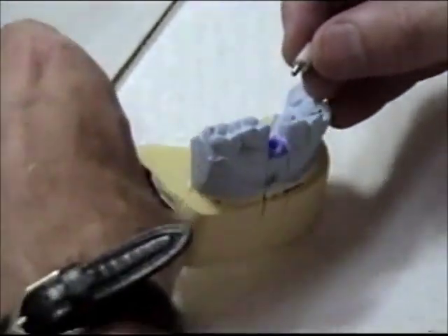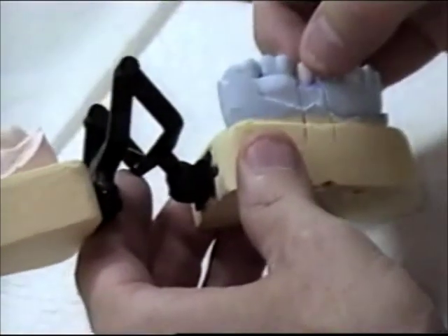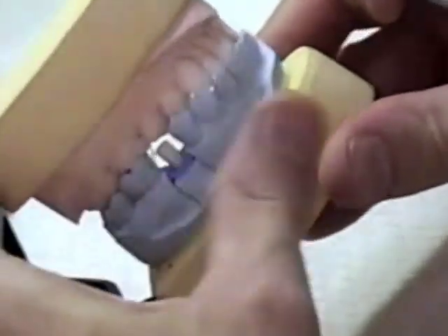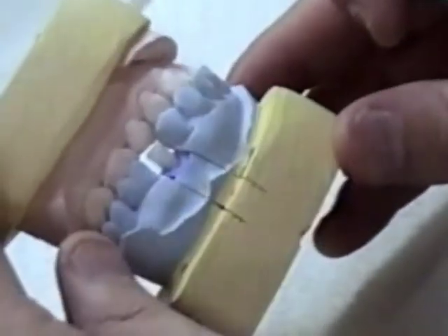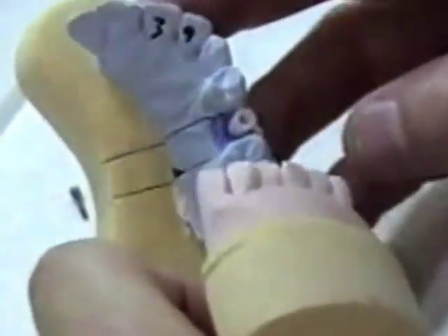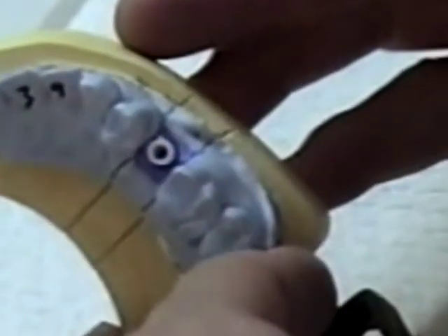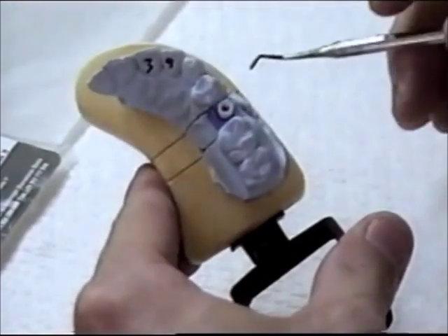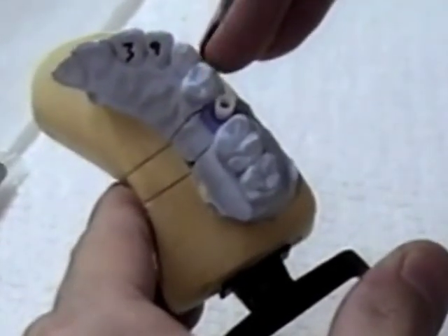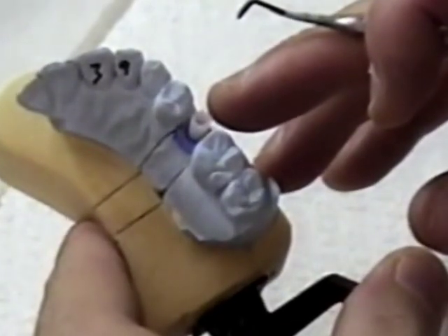Now I will cut down my cylinder to the proper size, and any further adjusting can be done when it is cast into gold. So I am just going to survey the abutment cylinder and get an idea of how we are going to wax the abutment here. As you can see, we are going to build up the lingual here because the implant has been placed slightly buccally.